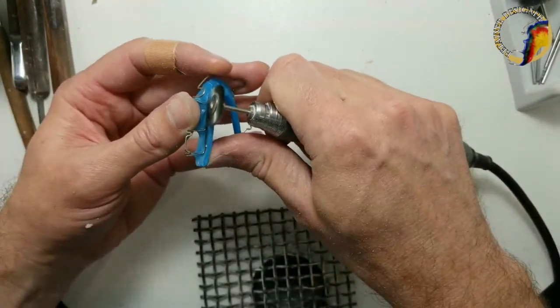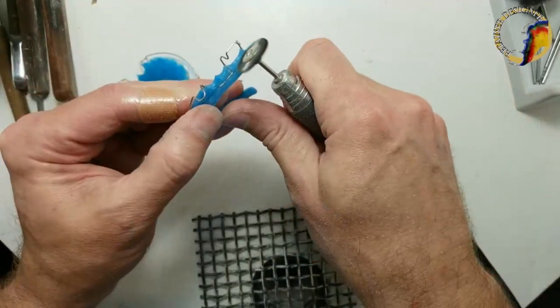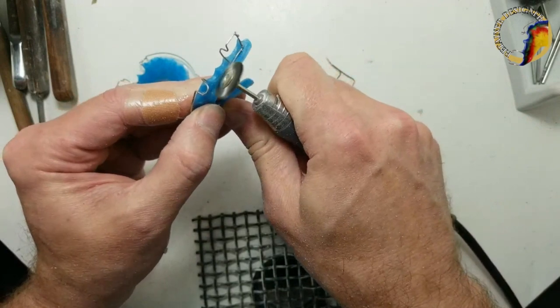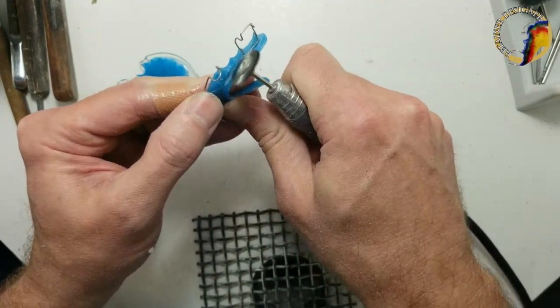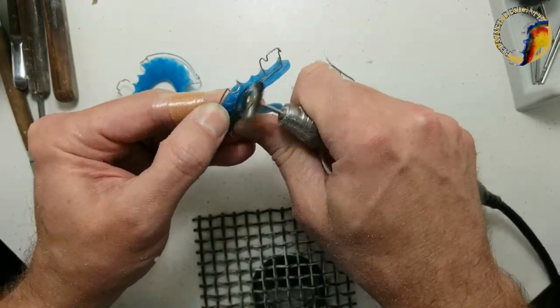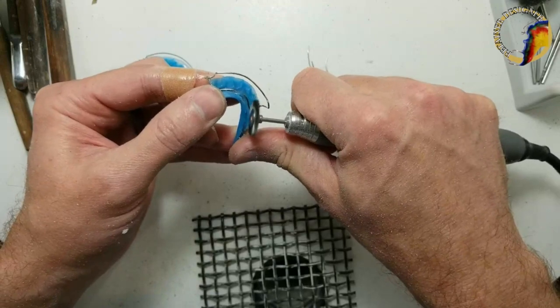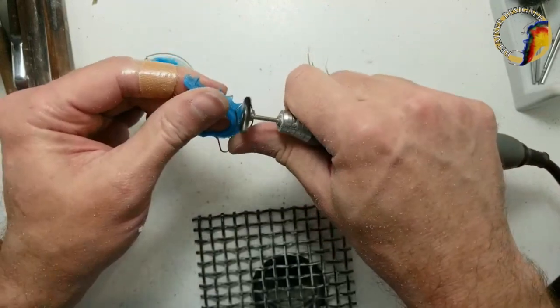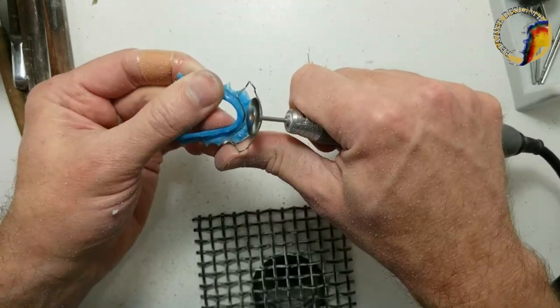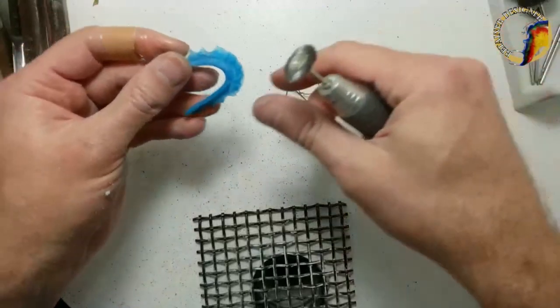You can see it just digs out that acrylic really fast. It's funny to see your work when it comes back — it's a real eye-opening experience, especially if a patient has worn it and it's broken or something. You can see the adjustments the doctor had to make on your retainer — like if my labial bow wasn't tight enough. It's a good learning process. This is a little frustrating because you made two perfectly good retainers but they want to change the colors.